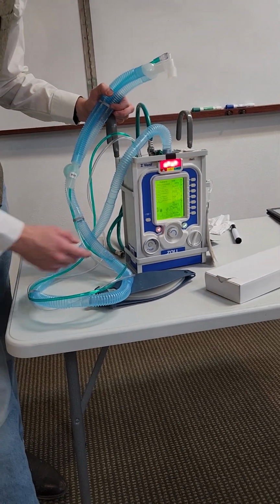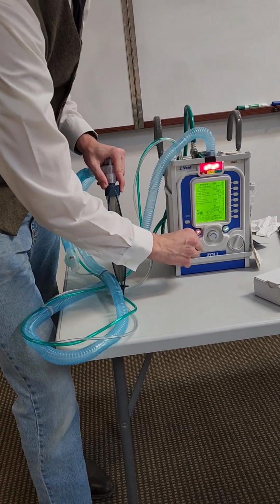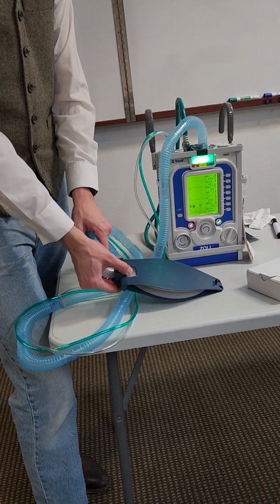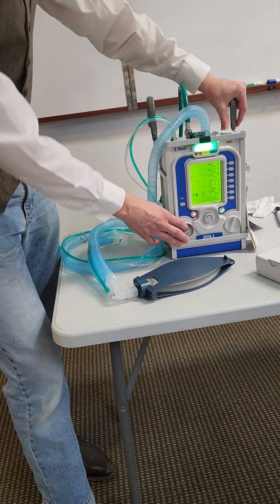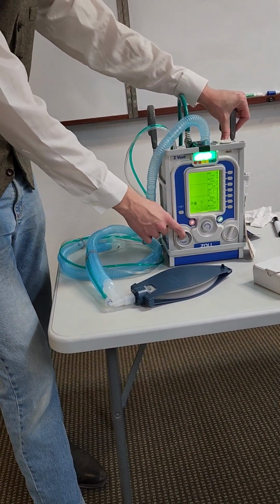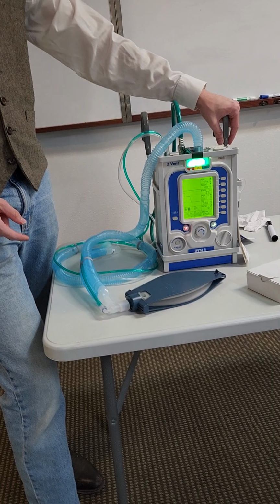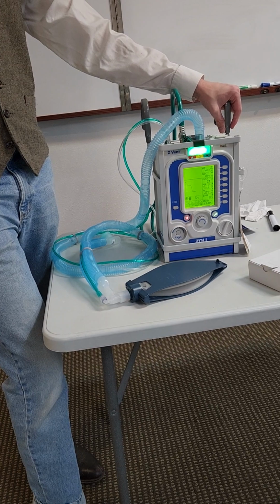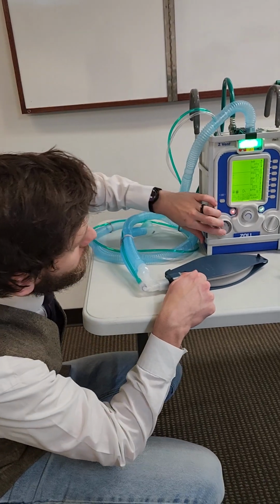The thing with CPAP is that if we're going to ventilate for demonstration purposes, in CPAP it's supposed to be spontaneous. The patient has to be able to spontaneously ventilate off themselves. So I'm just going to have to press the manual breath every now and then to make sure it doesn't just start alarming, because it becomes very difficult to change these settings once it gets into this alarm loop. You're pushing the button because you're simulating breathing. Yeah, okay. It's just a manual breath. It's not something you have to do if you're on max CPAP. With the CPAP mode here, so we're in CPAP.